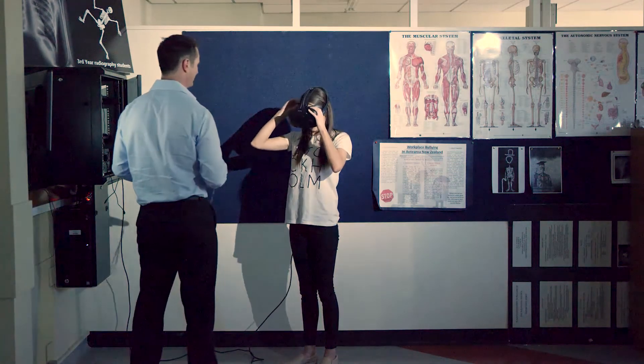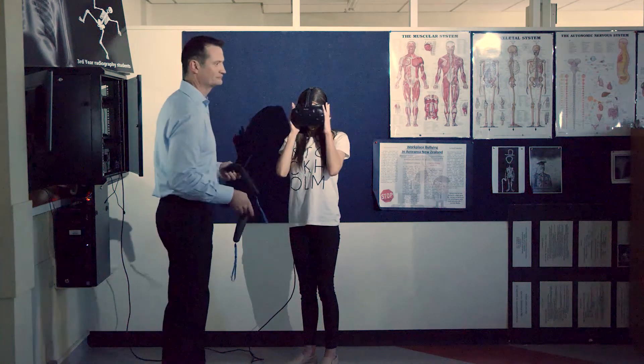Allowing the students to use virtual reality simulation means they'll always be able to use the most up-to-date equipment. It's current, it's modern, and it functions in the exact same way as you'd expect a machine to function in a hospital.